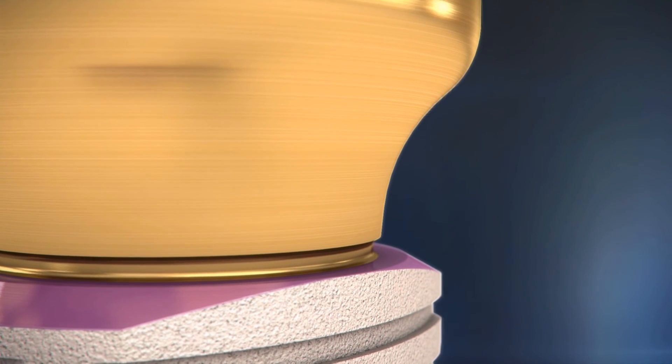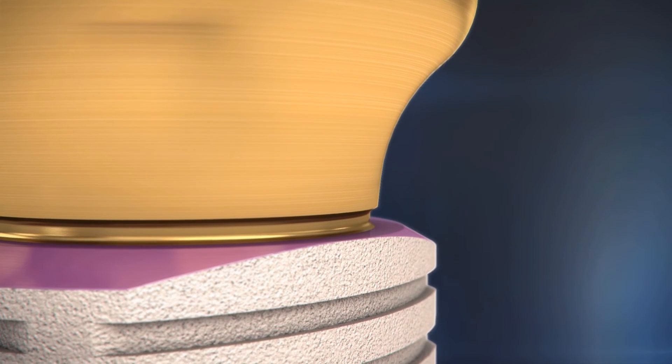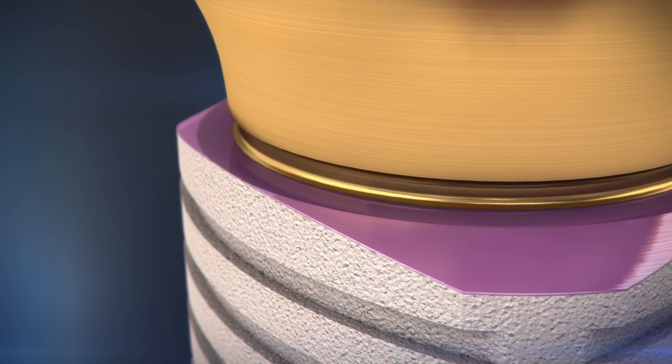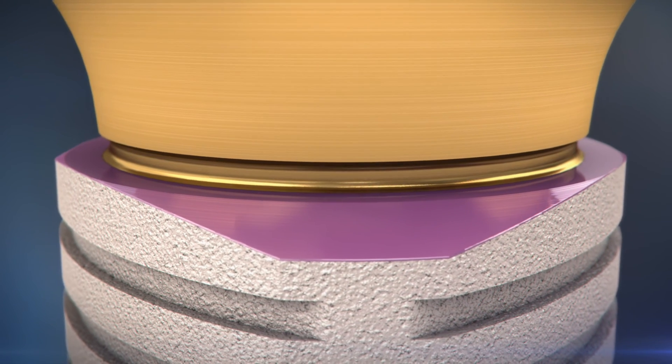Tulip-shaped abutments allow increased connective tissue volume, resulting in a sustainable aesthetic outcome. The positioning groove provides a visual indication for complete seating of the abutment.